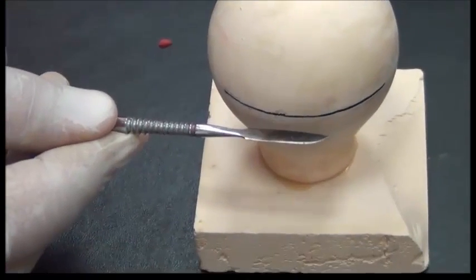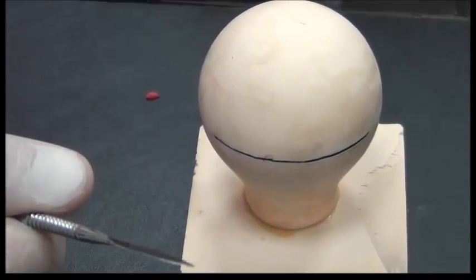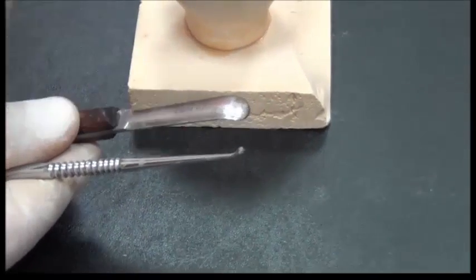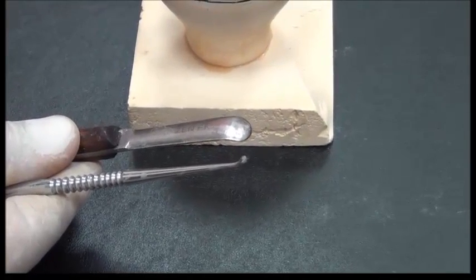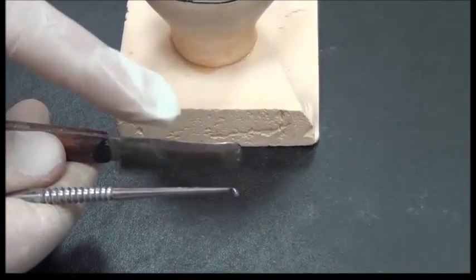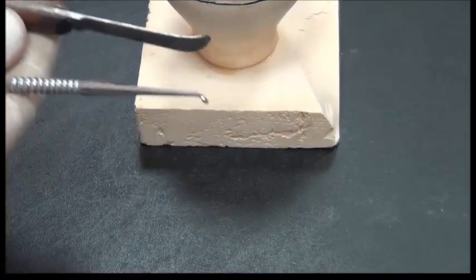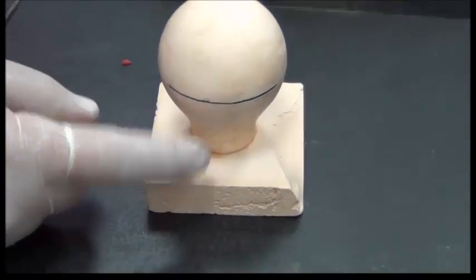The amount of undercut utilized in a tooth is dependent on the material we're going to use. Suppose this instrument is a stainless steel wire, and suppose this instrument end is a chrome cobalt. This chrome cobalt is more rigid than the stainless steel wire you have used in your RPD when wire bending. That means the amount of undercut I should use for this one is less than the undercut I use for the stainless steel wire. So at what measurement should I use? I need to gauge the undercut.